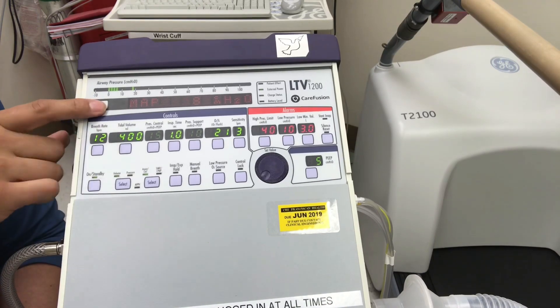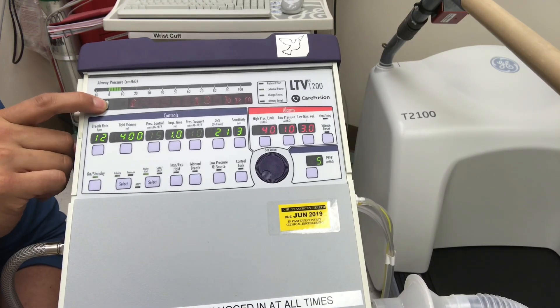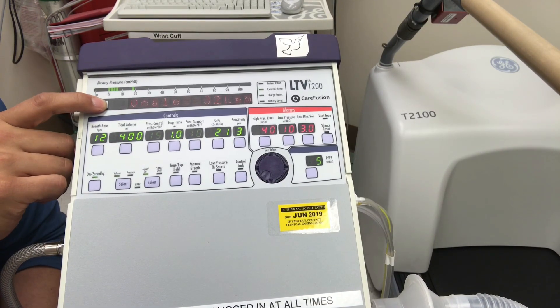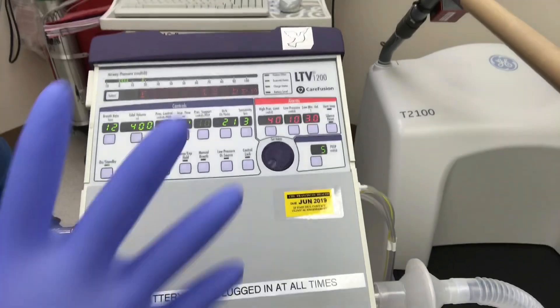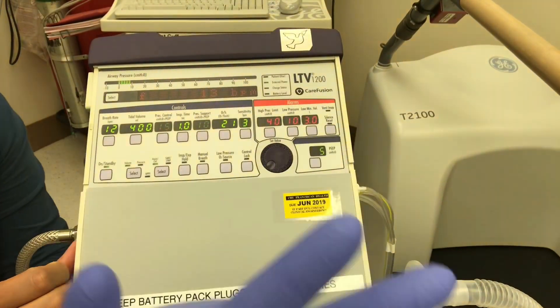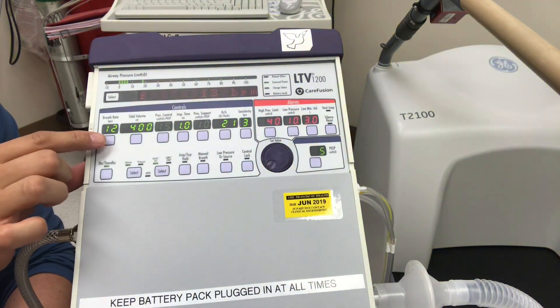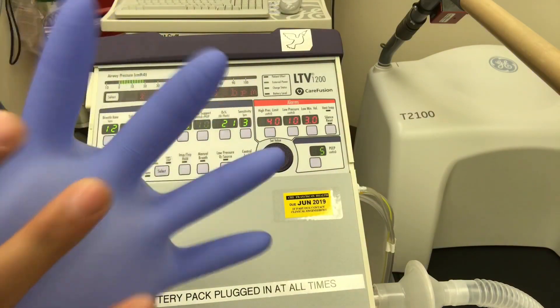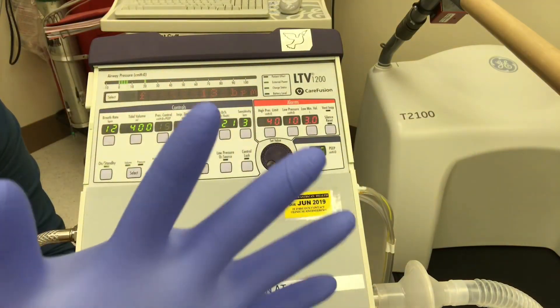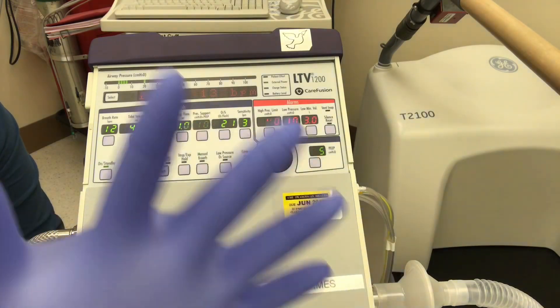Toggling through, the rate is represented as F for frequency on most ventilators. I notice this glove test lung is actually over-breathing — we have a rate of 12 dialed in but it's triggering an extra breath, so it's actually breathing at 13, over-breathing by one.